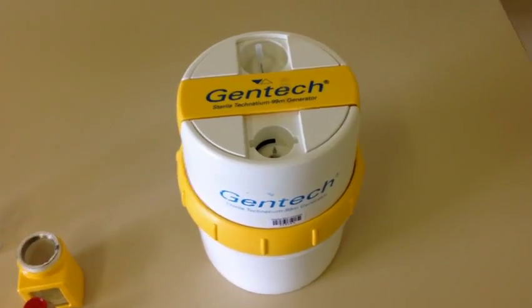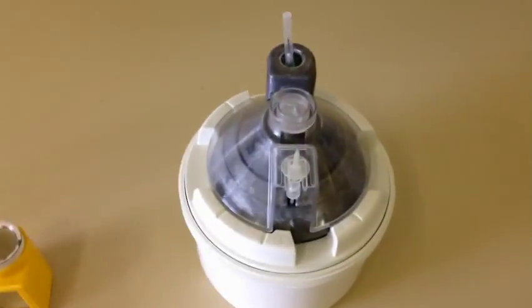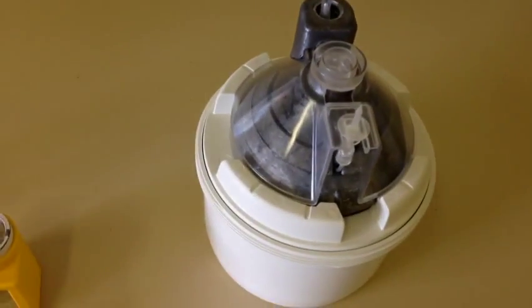This system, I'm not going to pull it apart completely. The mechanism is relatively similar. So if I take that top off, you can actually see that there's a lead housing inside there.